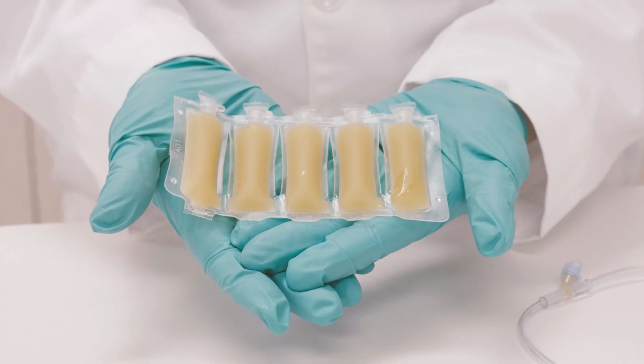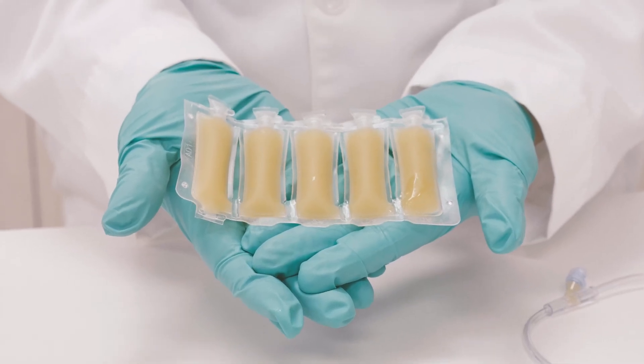The Origin Biomedical CryoStore FlexBag, offering flexibility, quality, and convenience. Embrace the future today.